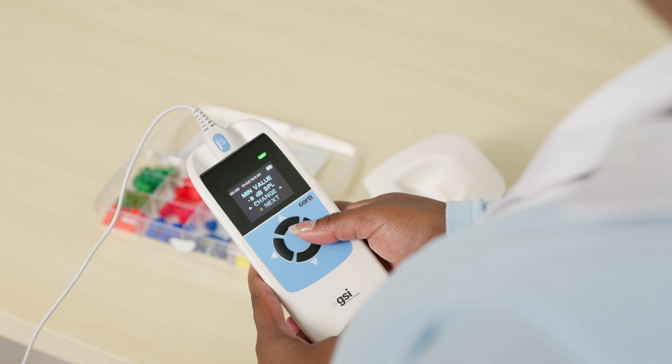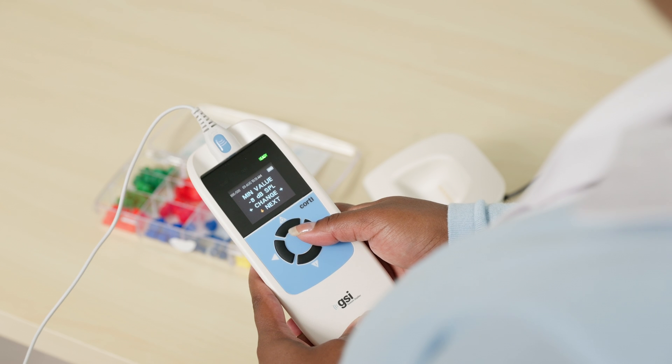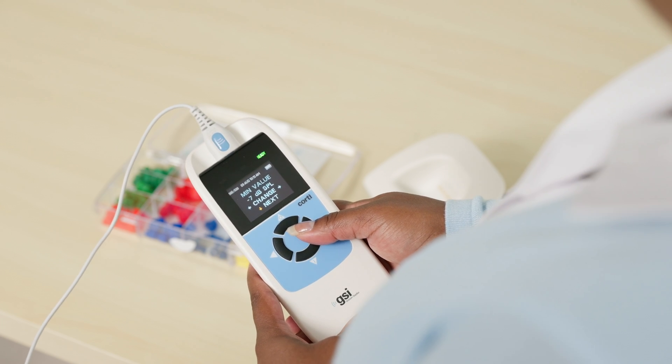MinValue is an abbreviation for minimum OAE amplitude value and adds an additional criteria for a pass at each test frequency. In other words, the OAE must be measured at or above the selected decibel level in addition to the 6 dB signal-to-noise ratio. The minimum amplitude value can be set in 1 dB steps from negative 10 dB SPL to positive 5 dB SPL. Check your facility guidelines for the appropriate test setting.